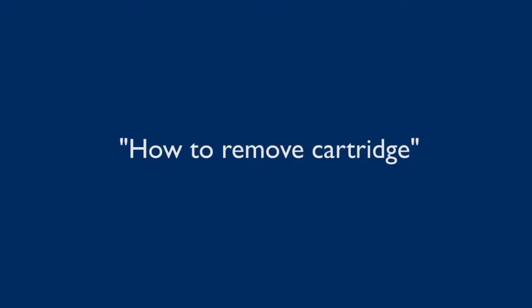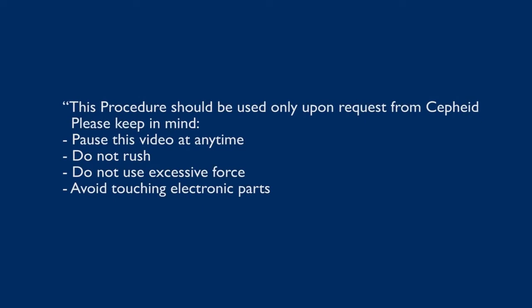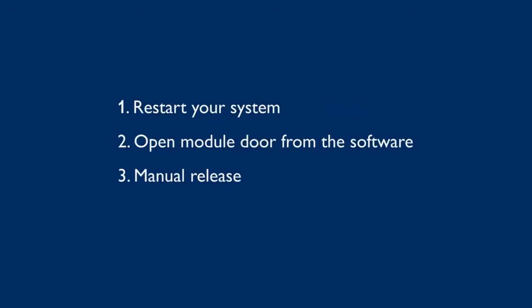This training video will show a step-by-step procedure on how to remove a stuck cartridge inside a GeneXpert machine. If a cartridge is stuck inside the GX machine, you can remove it by following these steps.